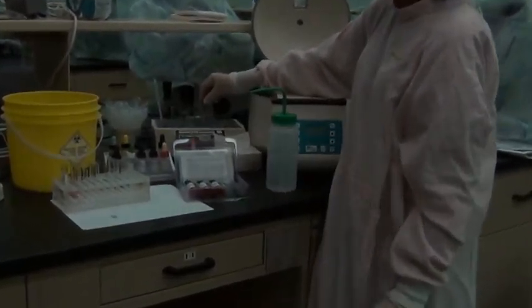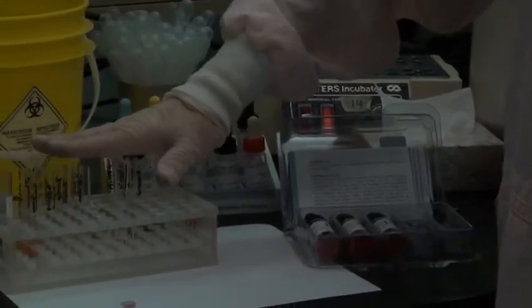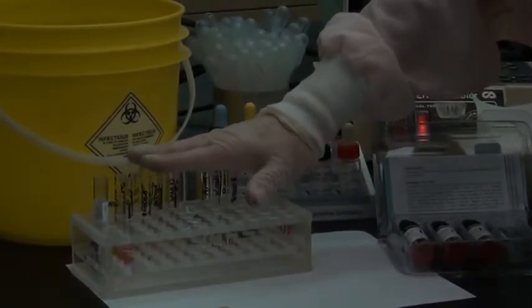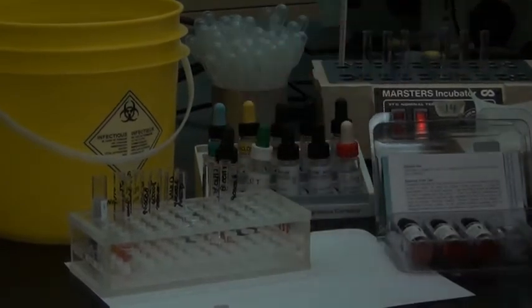So when you put the tubes in the incubator, always remember to carefully check the temperature and record the temperature on your requisition. In the meantime, we can get our ABO and D types into the centrifuge for 15 seconds and centrifuge those and record the ABO and RH types. So I'm going to not do that because you guys know what you're doing. I'm going to time warp the antibody screen.